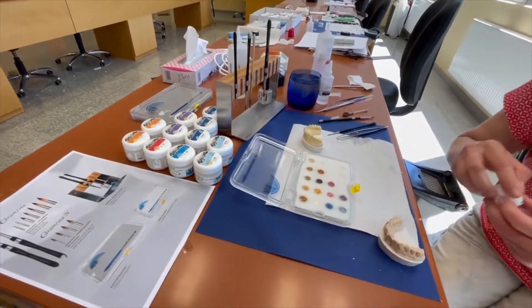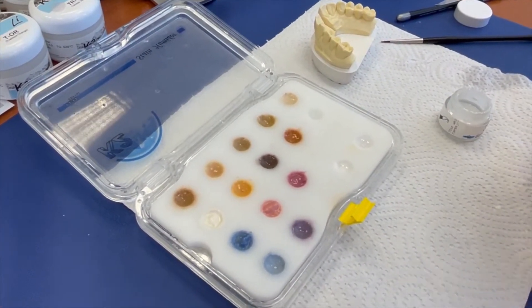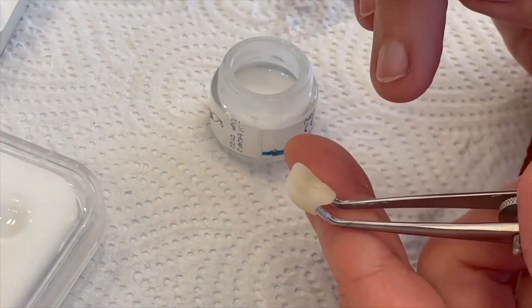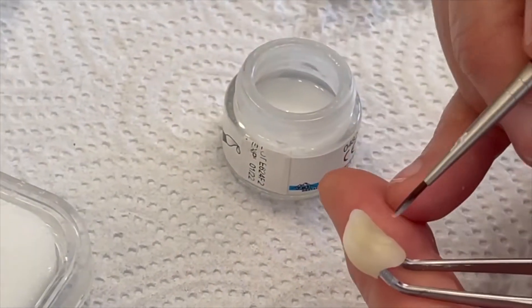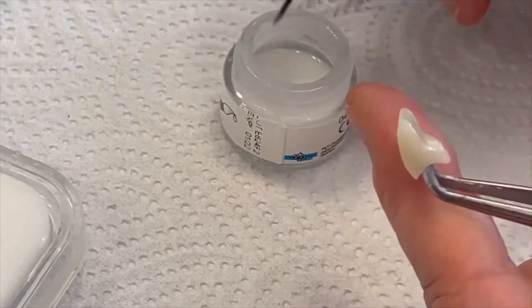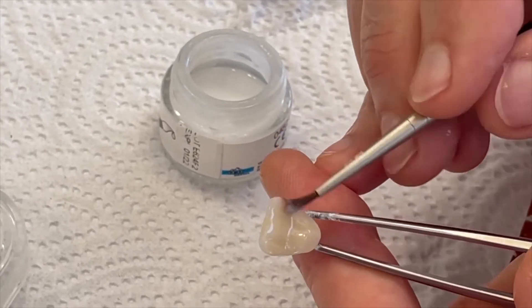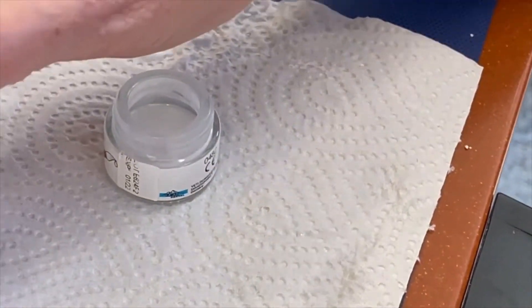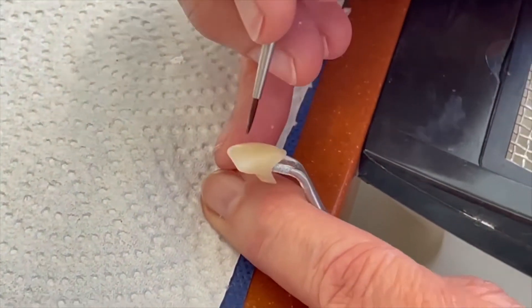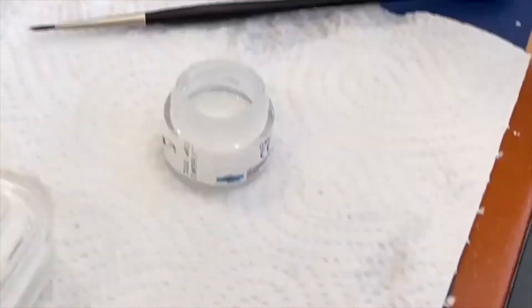She has changed from the humidor to the stain humidor. The stain humidor means colors are always wet — it is not necessary to add liquids again. For the Palatinal pressed material I use the glaze paste because pressed material needs a great glaze paste. The glazing paste does not require two or three firings as people used to do some months or years ago. For the layered part it is enough to use the liquid and the stains. Andrea is ready.